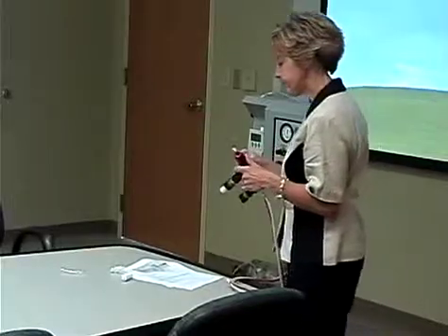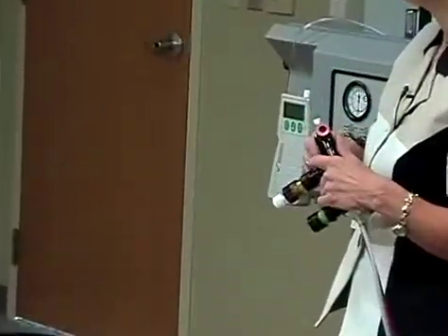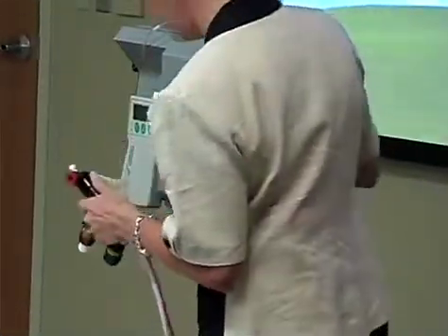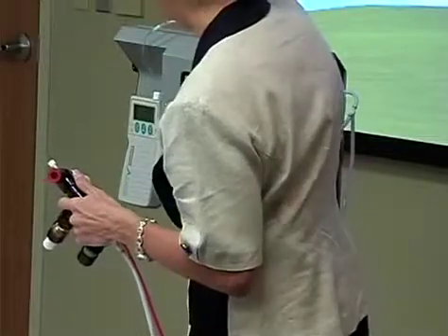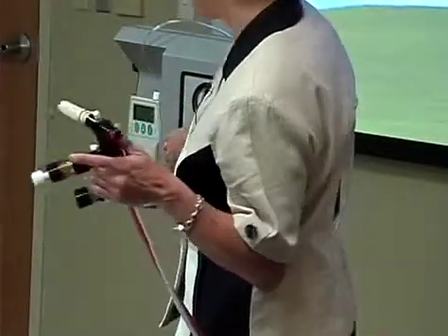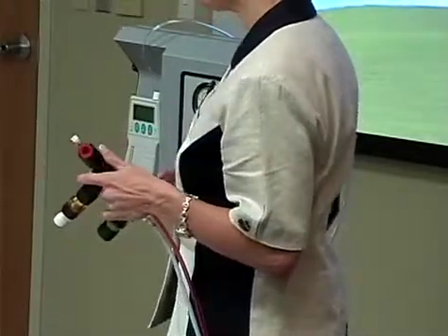So if I were going to set this up, can you throw out some vent settings? Tell me to set it up on something. 20 over 5. 20 on 5, so we're going to do something conventional? Well, I don't know, whatever you want to do. Okay. Let's try something high frequency. Yeah, we'll do conventional. Okay, so I turn it to conventional.